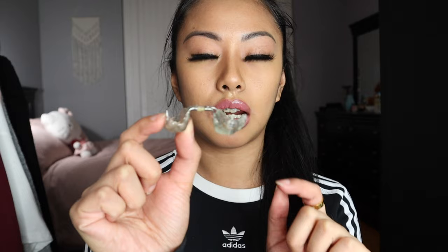I don't fully take it off often. I do take it off when I brush my teeth so I can really clean it, but other than that I don't remove it because I don't want the procedure from the last five months to collapse — that's what my orthodontist warned about. I'm like drooling so much. I'm going to insert a video showing the expander on the table, and I'm putting it back on before it collapses.